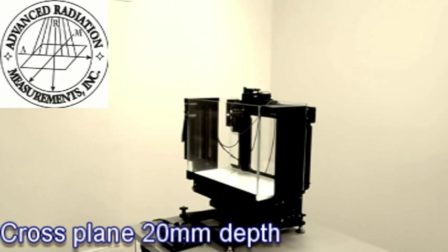Scanning now across profiles of 20 x 20 cm at 20 mm depth.